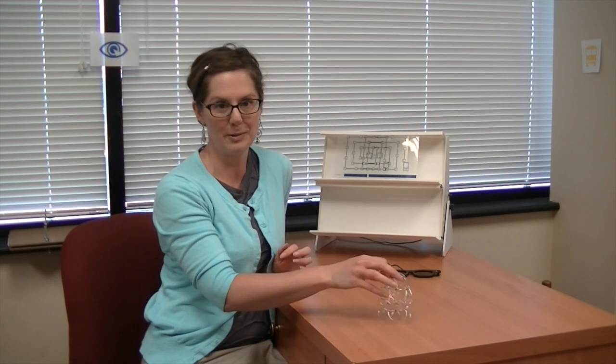Hi, I'm Dr. Julie Steinauer and this morning I want to go over a fun new gadgety toy that we have in our office.